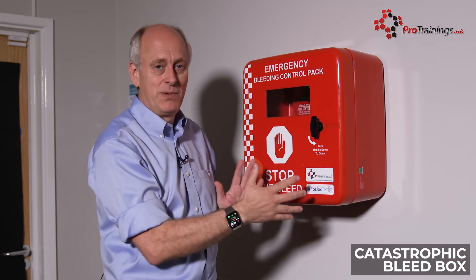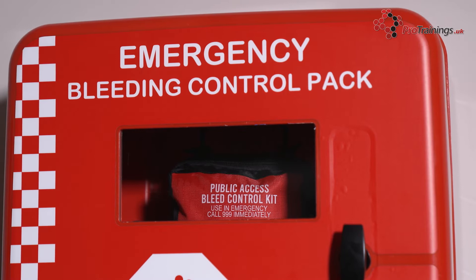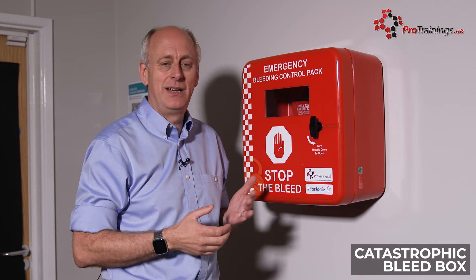The idea on the outside is a waterproof case, so it keeps it nice and clean — no dust is going to get in, no water is going to get in. You can clearly see through the window that the product is in there, and you can put different sizes of kit in there as well. We have a standard kit of ours in this particular box.